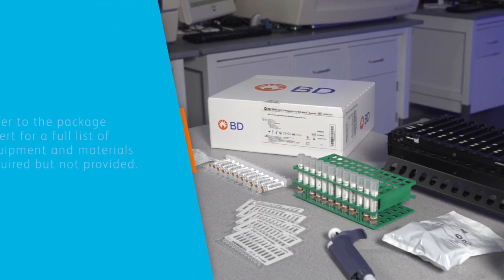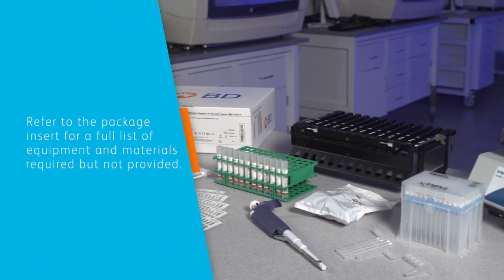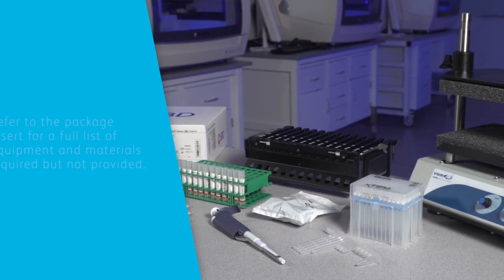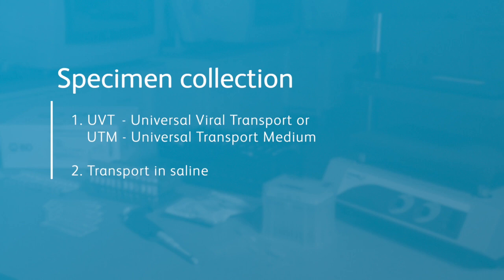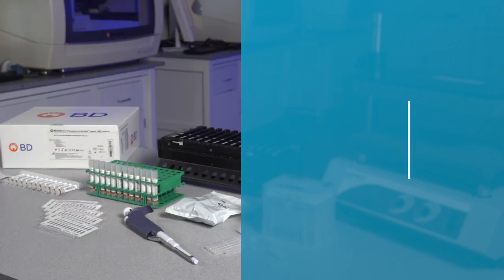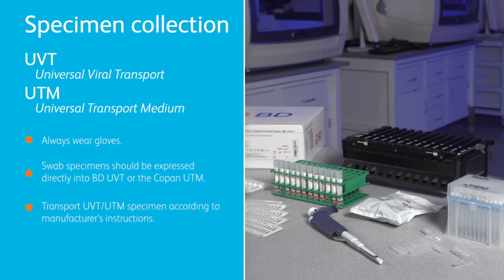For a full list of equipment and materials required but not provided, please refer to the package insert. There are two methods for swab specimen collection using either Universal Viral Transport, UVT, or Universal Transport Medium, UTM, or Transport and Saline. Let's first consider Universal Viral Transport or Universal Transport Medium.